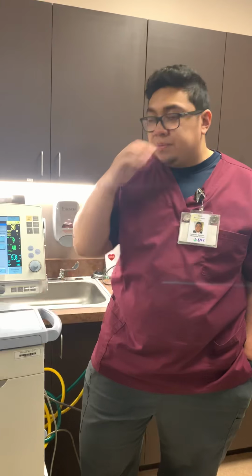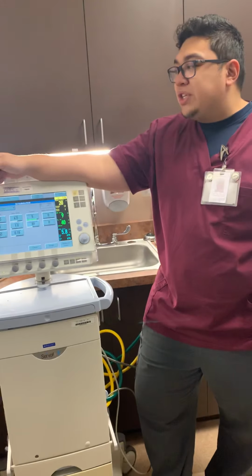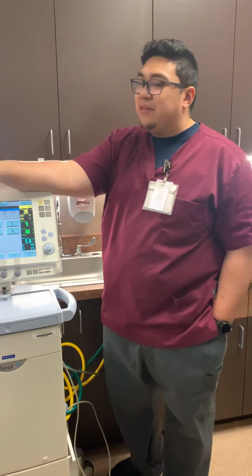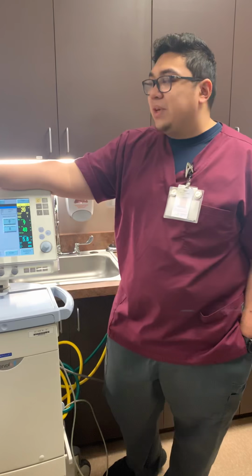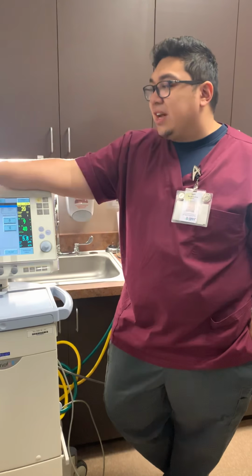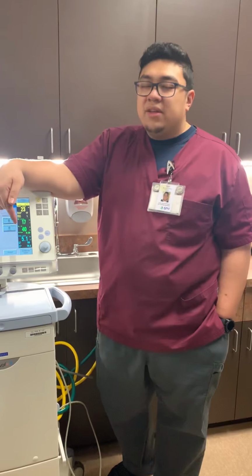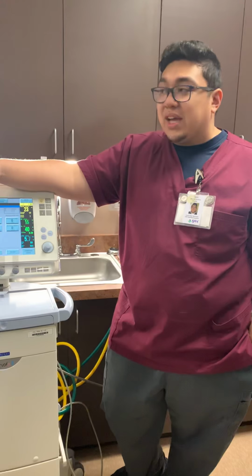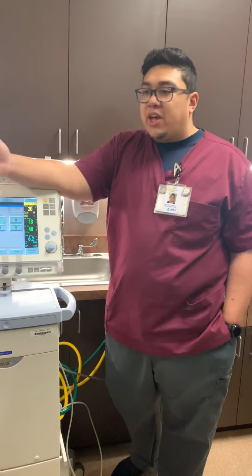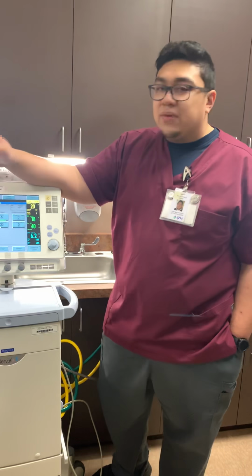The cool thing about this is that you don't have to change machines for Bivent. If you're switching them back and forth between this and the HFOV, it's going to be very time consuming, and it's going to be very hard on the patient because you're disconnecting them, reconnecting them probably twice. If you disconnect them to put them on a normal vent and then they didn't tolerate it, then you have to disconnect them again and put them back on the HFOV, which you're going to lose a lot of PEEP, you're going to lose a lot of lung recruitment unless you clamp off the ET tube, right? So that's a very cautious thing to do.